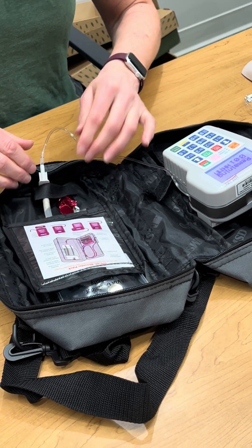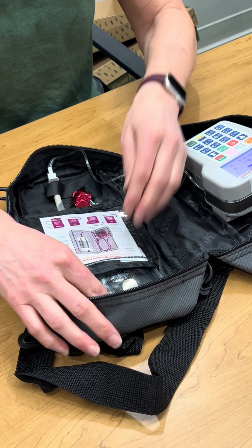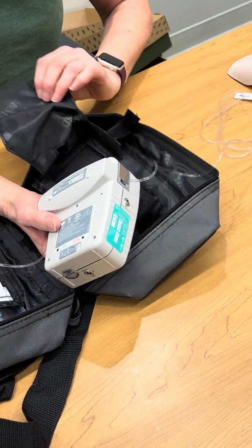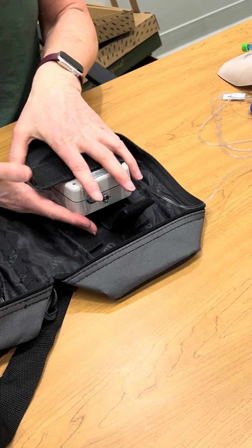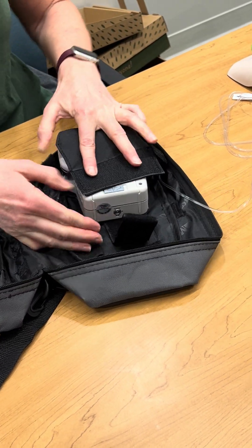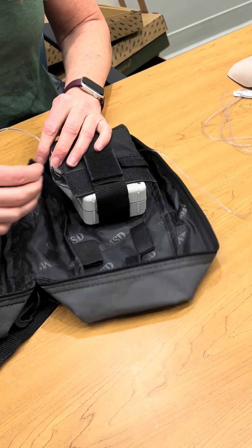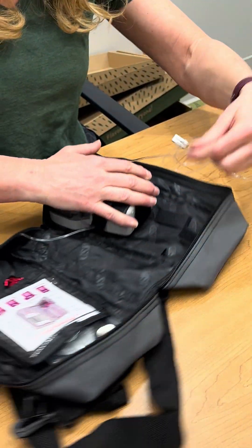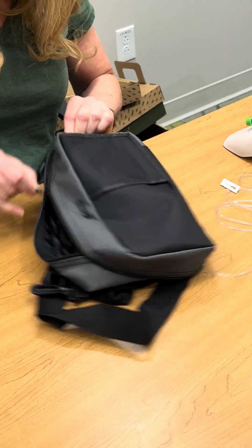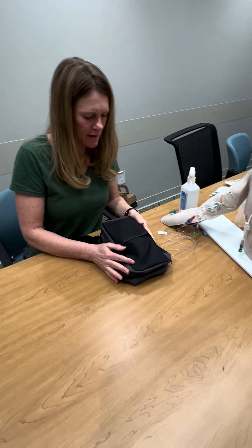There's another piece of Velcro down here. My bag seems like it's down too low, and if I try to fit it in there it's probably going to kink and give me an alarm, so I'm going to pull it up high — and that's okay to do. I'm going to turn the pump upside down and backwards and put it into the pouch. The tubing can come right out the top of the bag. Now your pump is infusing for the duration of the bag.